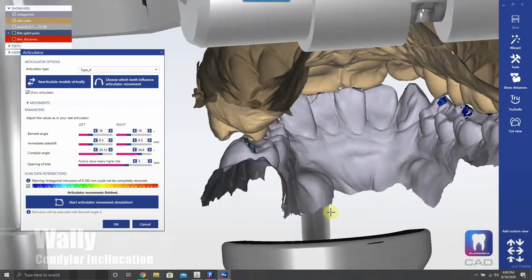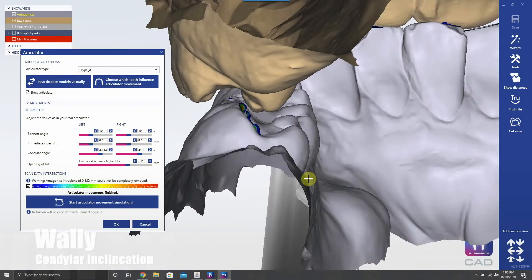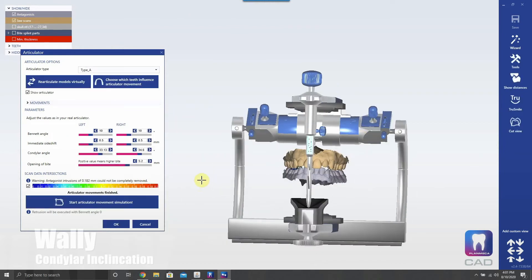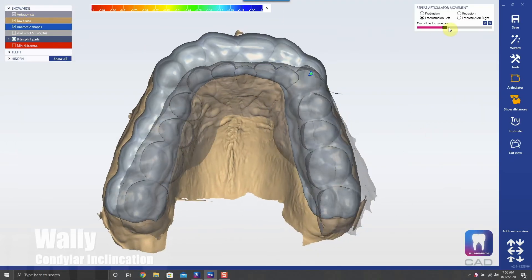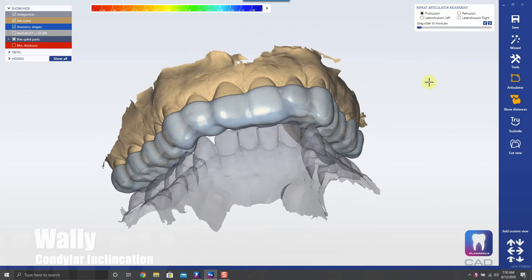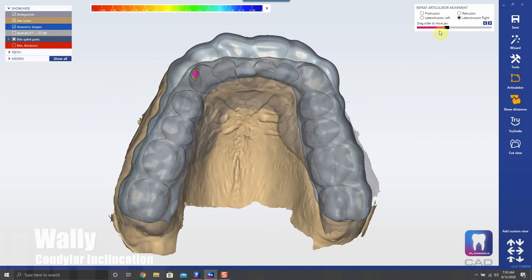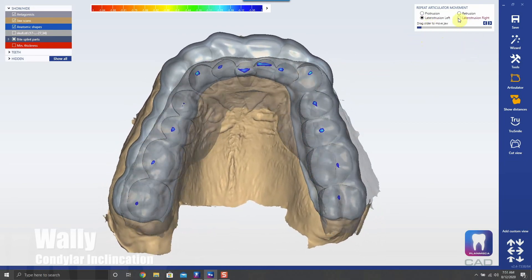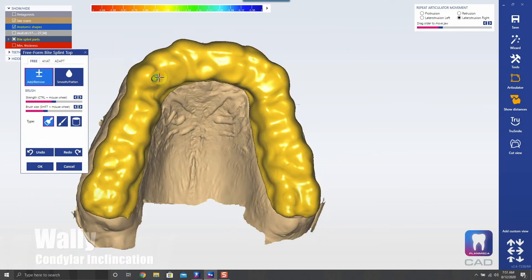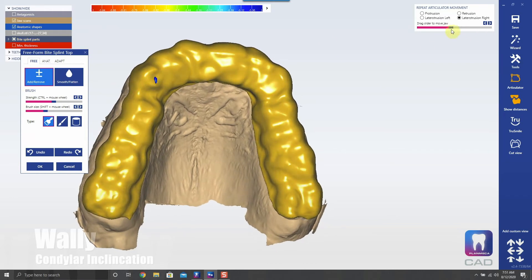As you can see, we have just a tiny bit of room for our occlusal guard. This patient has severe issues with their occlusion, so we're opening that up a little more to give us some room. Here we are with the occlusal guard design — we have anterior guidance with posterior disclusion during lateral excursive movements, and also cuspid rise with posterior disclusion. It's a little heavy here on this cuspid ramp, so I'm going to buff that down to get posterior disclusion without it riding too heavy.